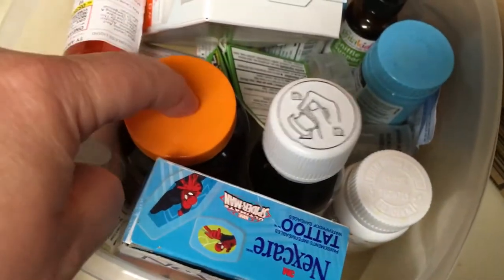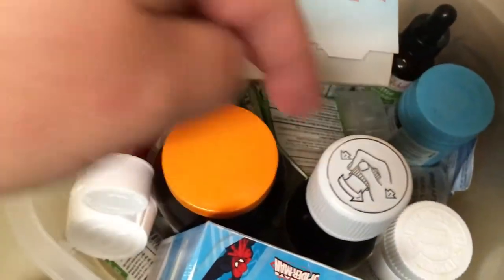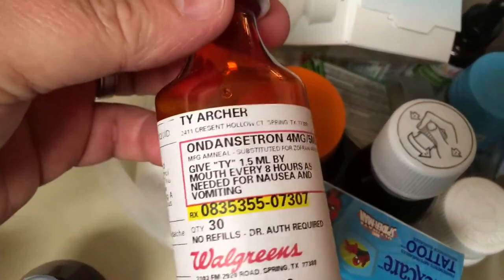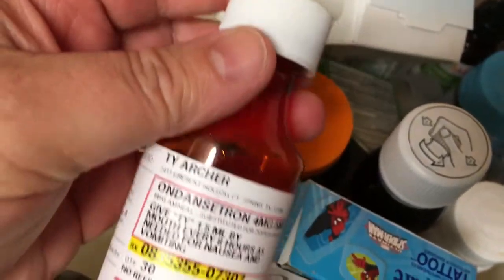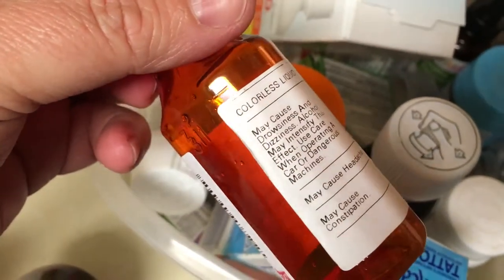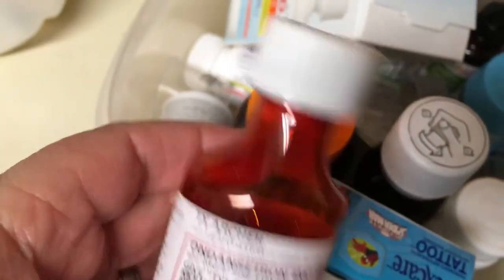But there are a couple bottles they did not fit in. You got the big bottles here — this is a pill bottle — but it didn't fit this prescription bottle. The hole was too small. Probably a 20 millimeter bottle adapter would work here.